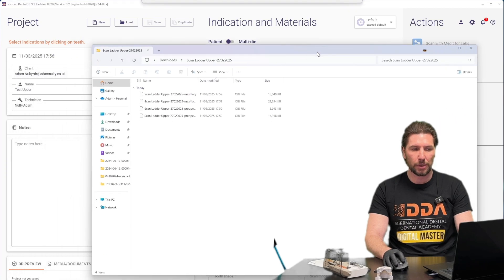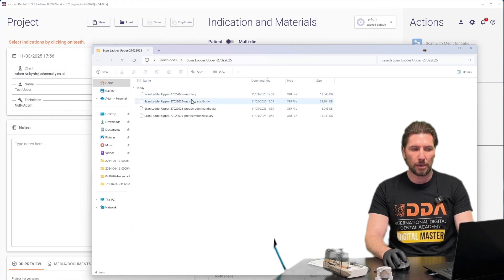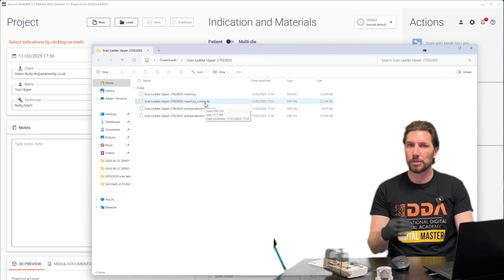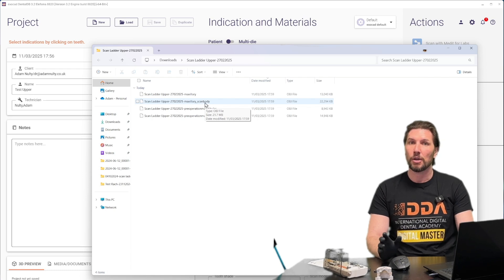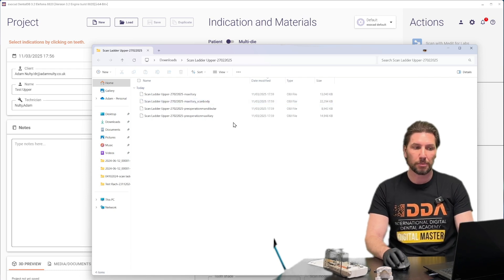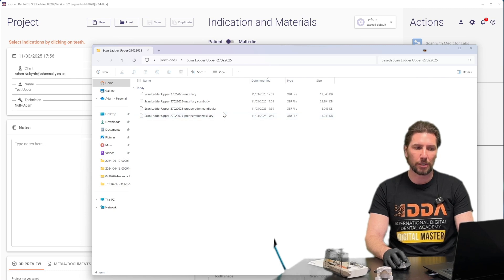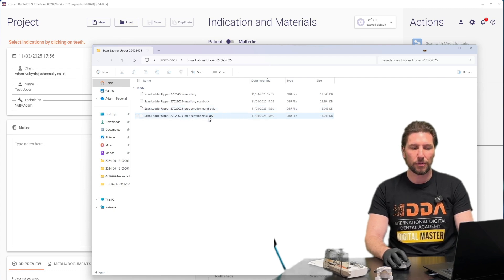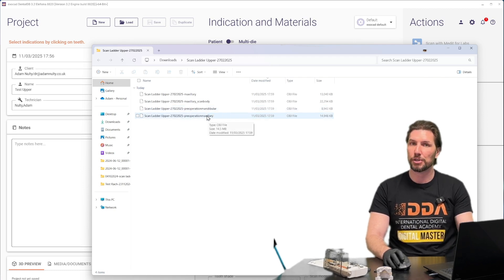Let's have a look. In there we have our maxillary data, which is the edentulous data. We've got the scan body data, which is the virtual scan bodies provided from the MeditSmartX scan flag pickup, and we also have the preop data of the maxilla and the mandible. The mandible preop is the opposing arch, and the preop maxilla is the scan of the provisional in place.